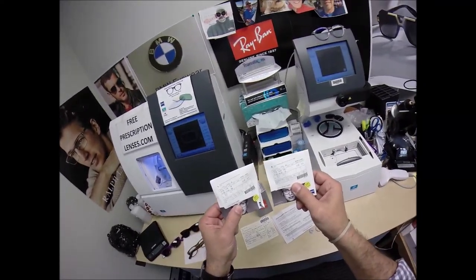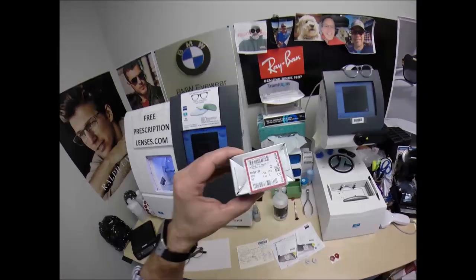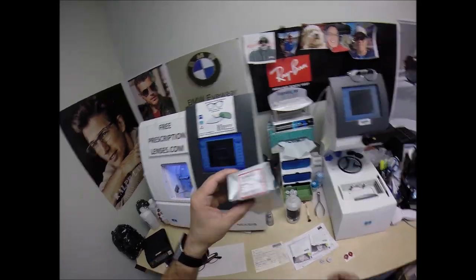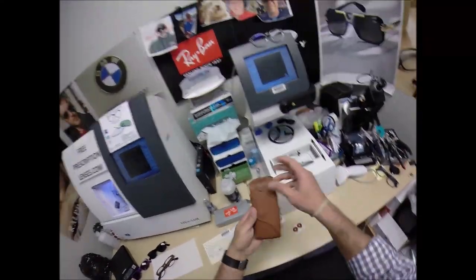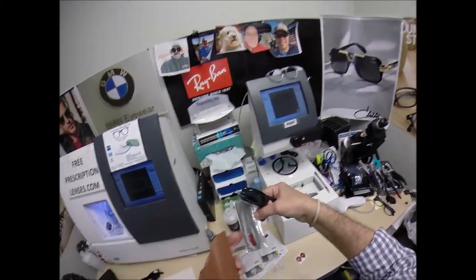This is the Transition that turns polarized gray outside, and it has Duravision Chrome anti-glare. For your Ray-Ban 2132 New Wayfarer, color 622, which is the matte black rubber in the 52 eye size, let me take everything out of the original packaging. As Ray-Ban sends it to me, your Italian leather Ray-Ban case, your Ray-Ban frame with cleaning cloth.